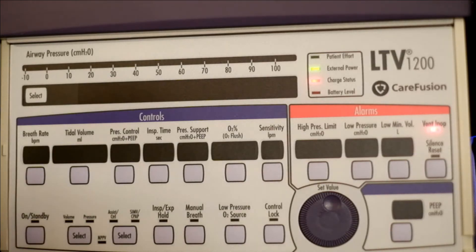Okay, just to recap, if you're having some BiPAP issues, one - always make sure that the patient has a proper seal. That is going to be the most important thing. Any kind of air leaks, you're going to get alarms. Make sure you have enough oxygen.